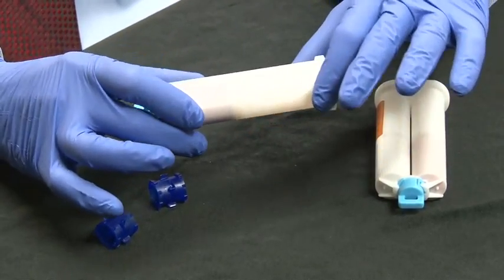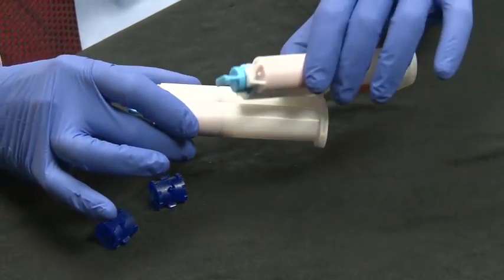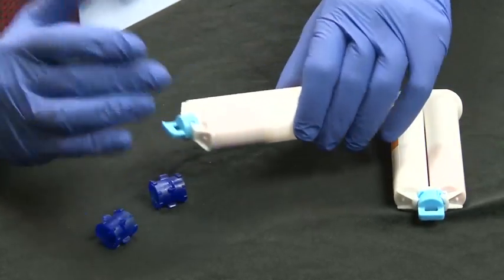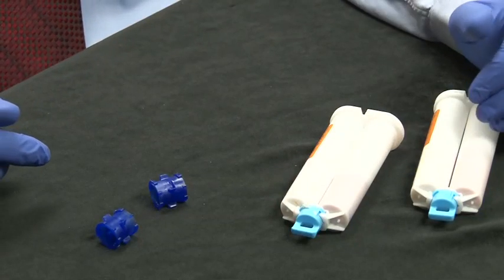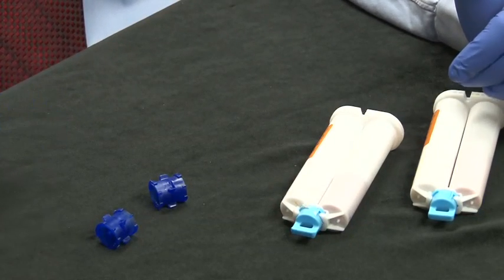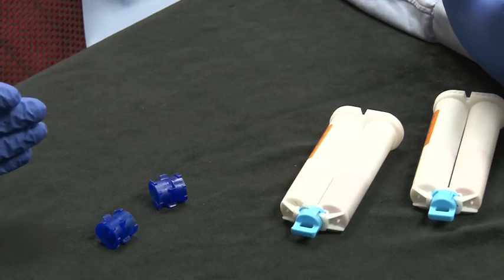Why do this? Well, it saves time, it saves motion spent switching cartridges during procedures. Sometimes if you have too little material, it creates a newly created cartridge where you're not going to run out of material in the middle of an impression.